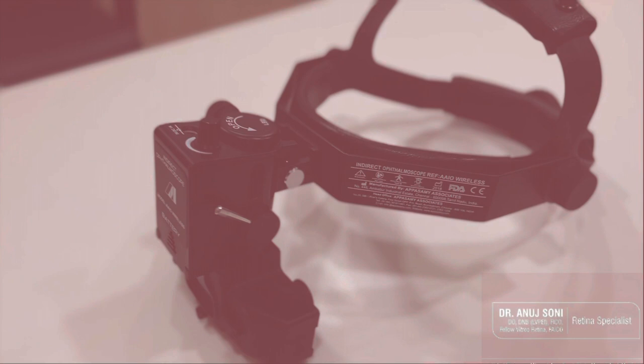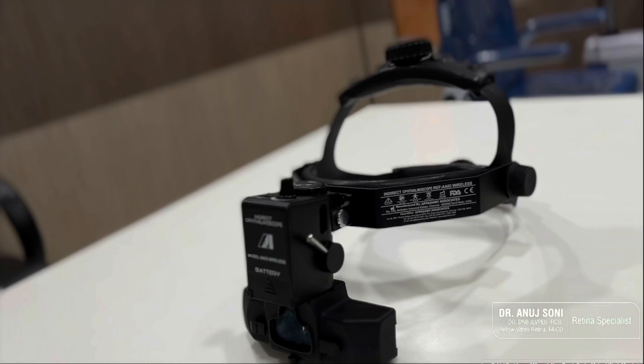Indirect ophthalmoscopy is one of the most confusing clinical examinations in ophthalmology. Not to say it takes time to master the skill as well. Most of the confusion happens in understanding the location and applying the fact that the image is inverted.